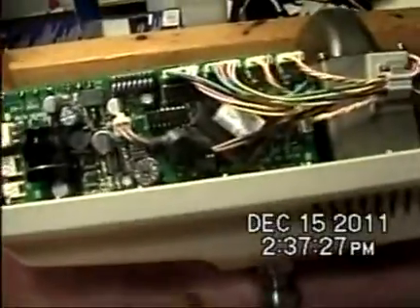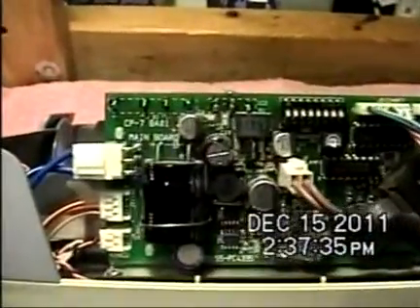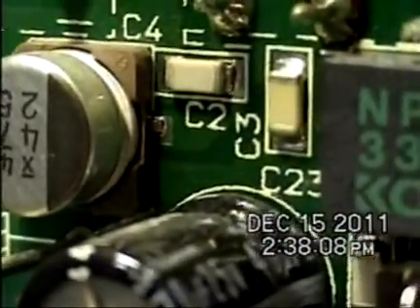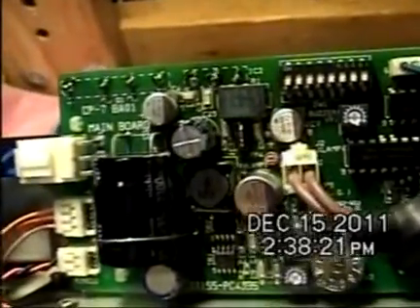The last time this happened to a chart in the adjacent exam room at Kaiser Reston, a capacitor burned out. This one is listed as C4. I've obtained the replacement capacitor which is apparently what's supposed to go there. There's a tiny tab of solder here and a tiny tab of solder here. All that has to be done to replace this capacitor is melt the solder on each side, pull off the capacitor, put in a new one, and re-solder it back without melting the circuit board.